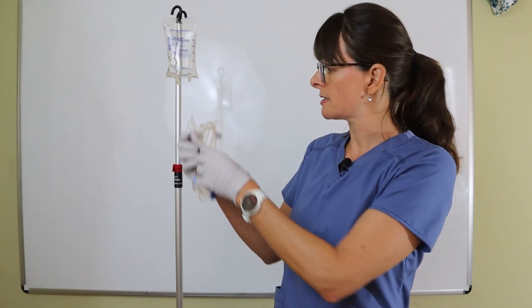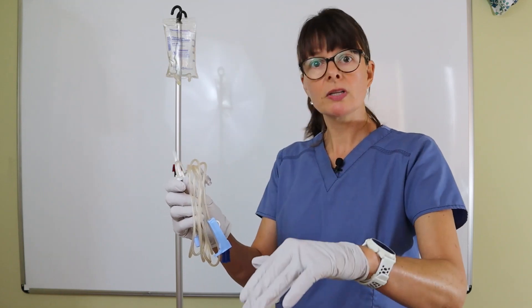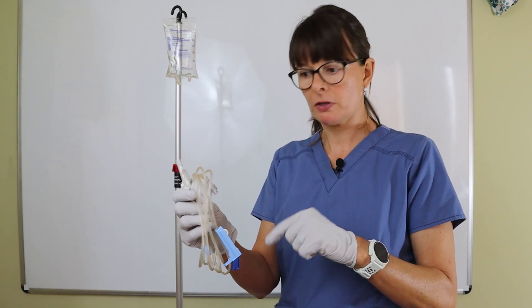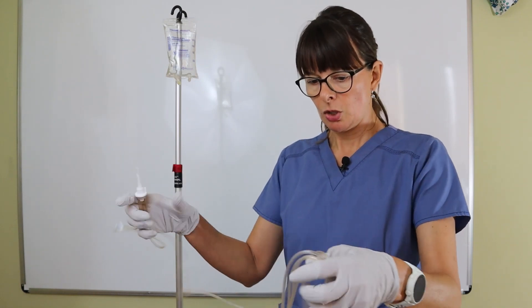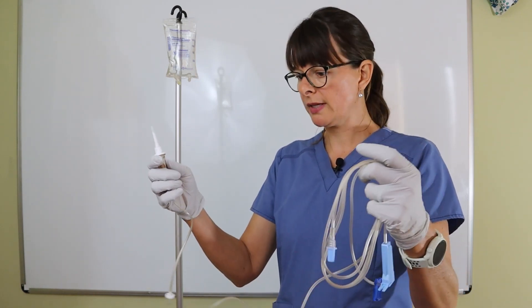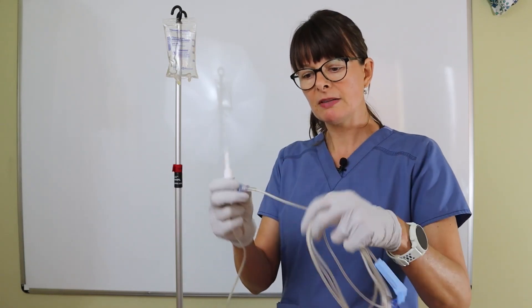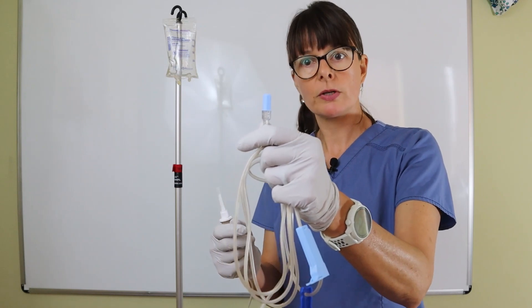The reason I need to do this is because if I start putting this in my IV bag, the fluid is going to start running and cause air bubbles that are very difficult to get out. Now I'm going to hold this in a secure way so I'm not dropping the IV tubing, specifically not the port that's going to attach to the patient's IV.